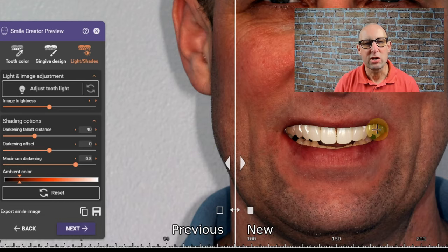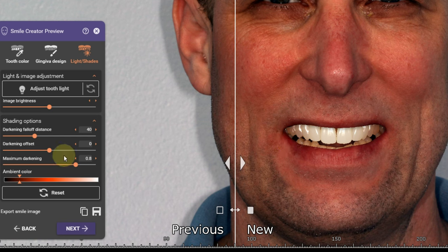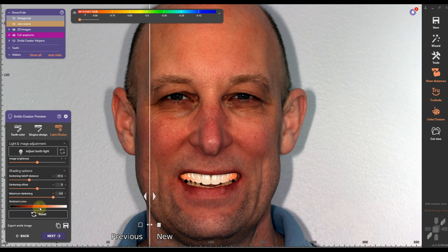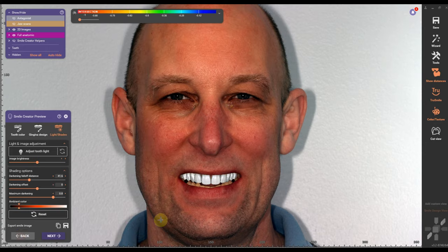I can change how my background looks — naturally with the light getting a little bit darker towards the back. So I can change the darkness in the back, or I can change the actual color. I can change the tone — I can make it more orangey or more like an ember look. I like this ember look.